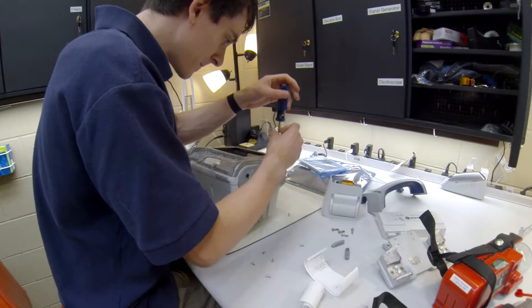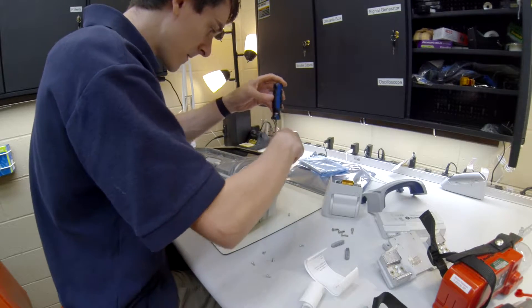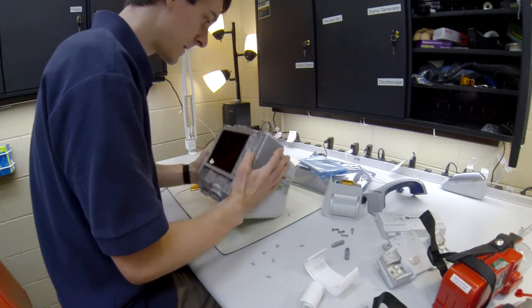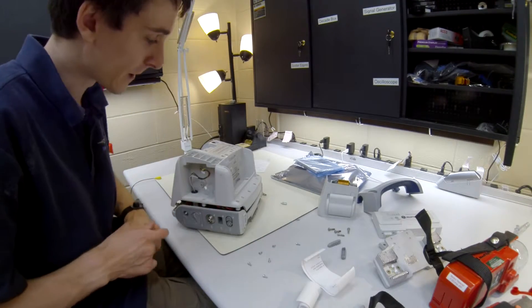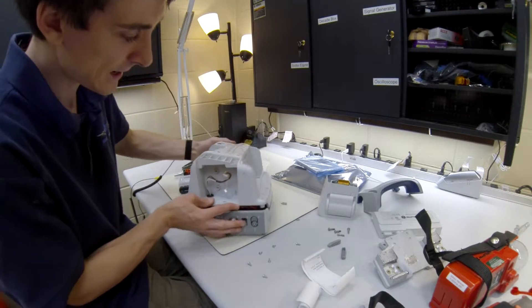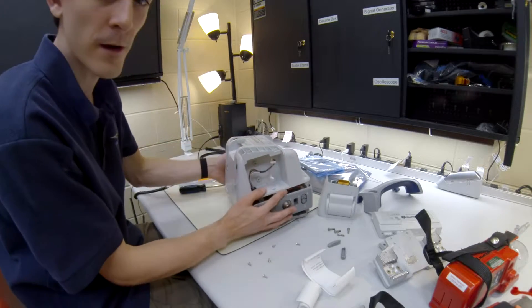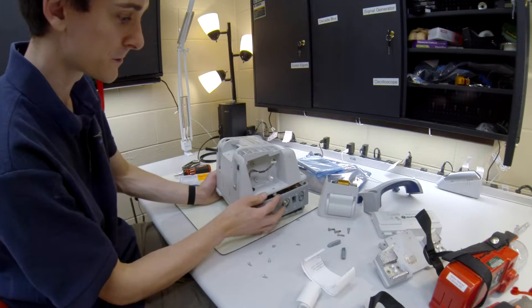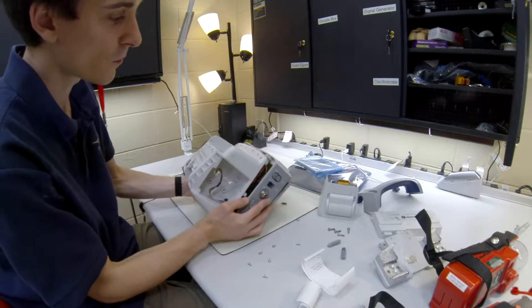I think it is all of them — maybe I'm just doing this wrong. I figured it out pretty darn quick. We are actually going to have to pull this whole unit apart, and when we do that we are able to access a single screw in there that allows us to then dismantle the whole front piece.